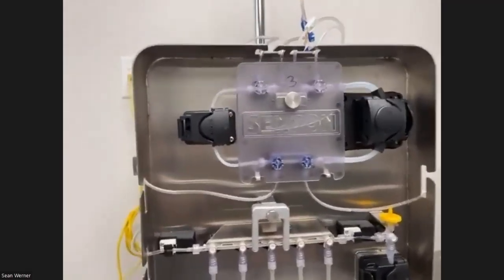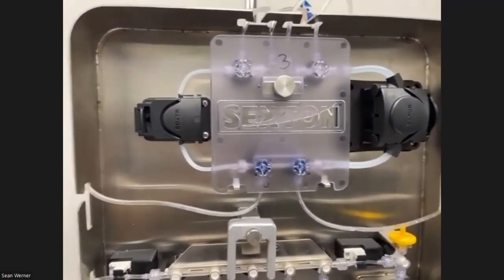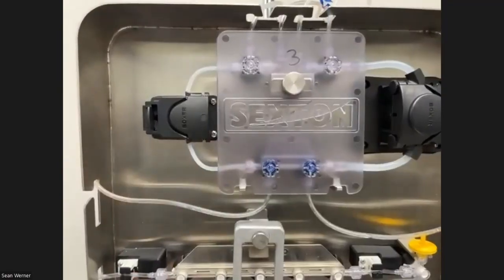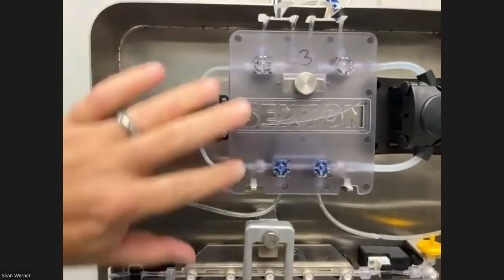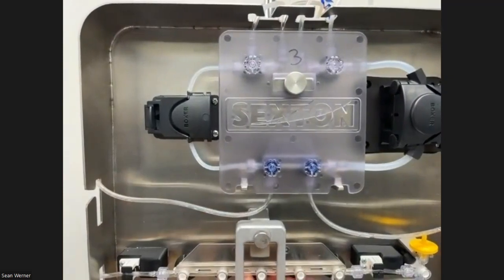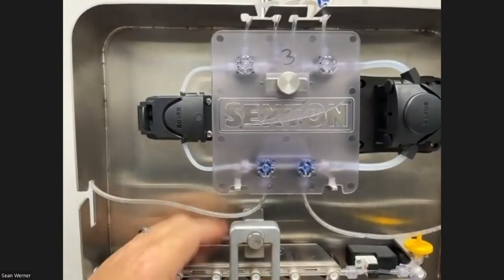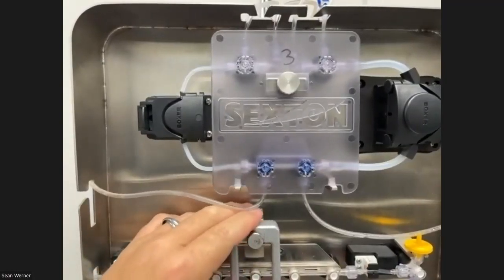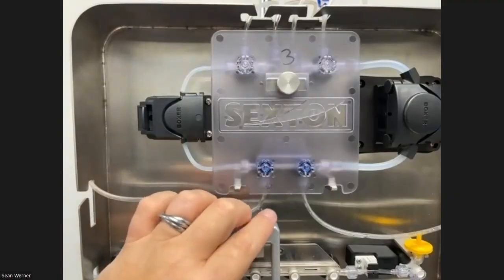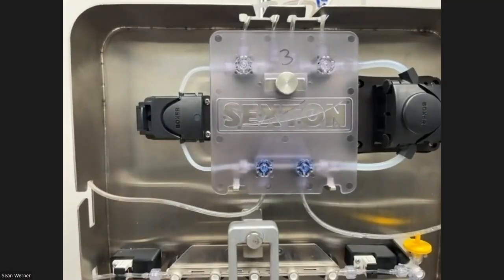All right, so I'm in a little bit close here. I don't know if you're going to be able to see this. Once I hit go, one of the things that's going to happen is that behind these sets, the fluid valves are all actually three-way stopcocks instead of pinch valves. The reason we went with that is because it allows us to reuse the fluid paths and move things in different directions instead of having twice as many or 3 times as many tube lines. It kind of simplified the process.